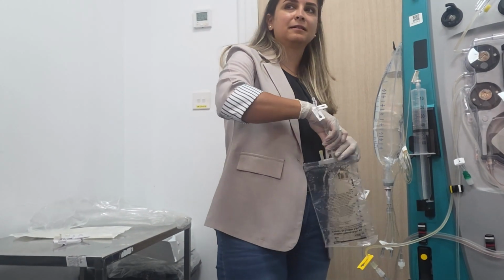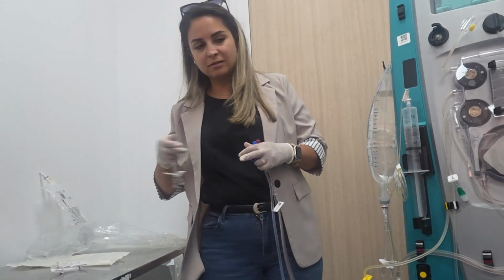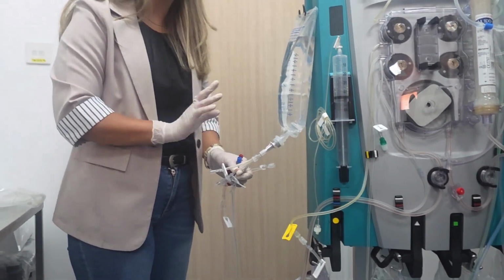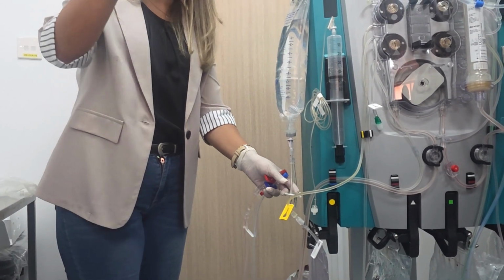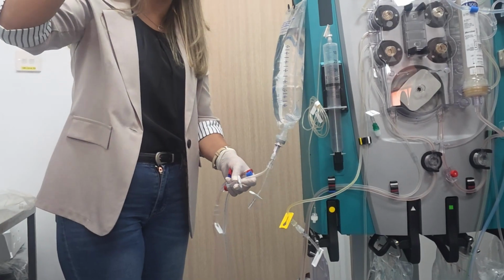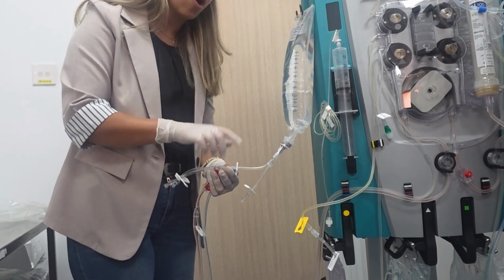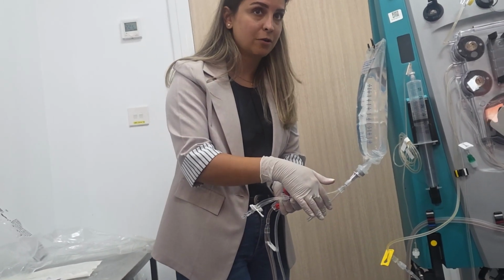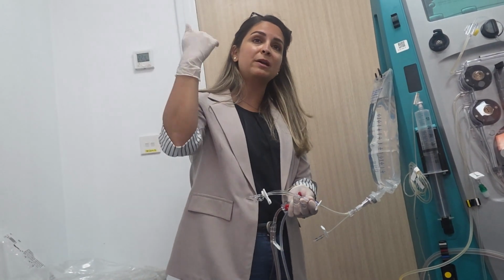That is return going to the patient. So let's consider, this is the patient, and this is the catheter of the patient. Red and blue, not the white line. So now my patient has no arterial, no central line, so I will use the Y line or your three-way high flow return connector. So this is the return. I will connect it to the return, always back to the patient, regardless of the color. Usually it should always be the blue return. So I will connect it to the blue, which is coming back to the patient.